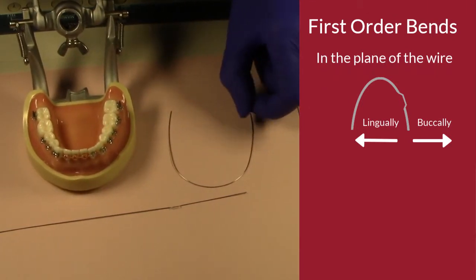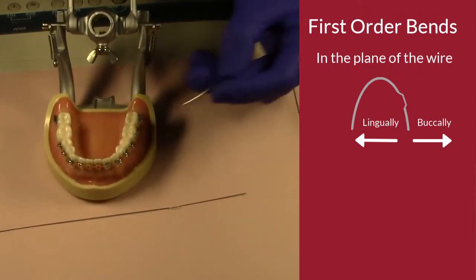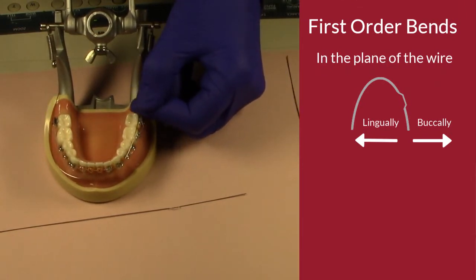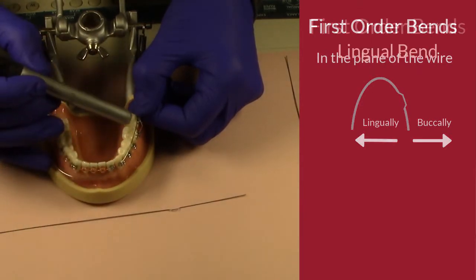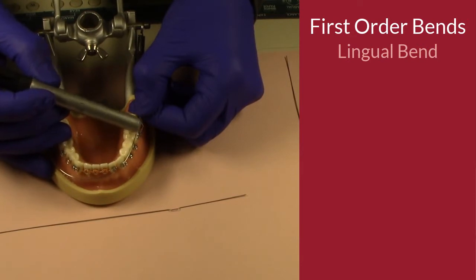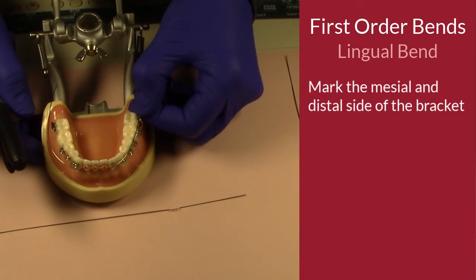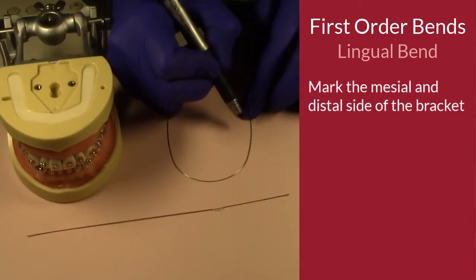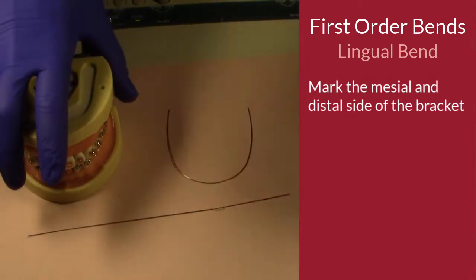When we are placing the wire, we want to measure where that bracket is located on the tooth if you had the study model. So right here, I know that if I want to put a lingual bend on tooth number 19, I'm going to make a mark on the mesial and the distal of that bracket because that's where I want that bend to nestle into that bracket. Measure that mesial, put a little mark there and a little bit on that distal. Now I'm actually making the bend.